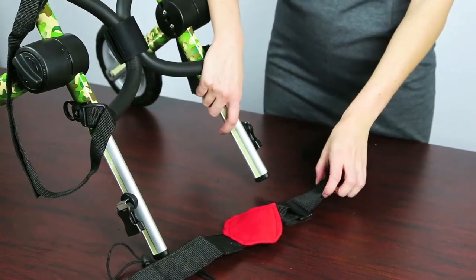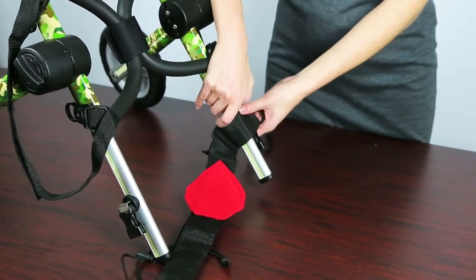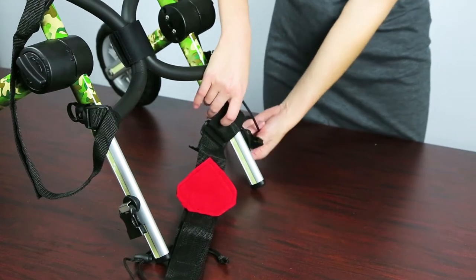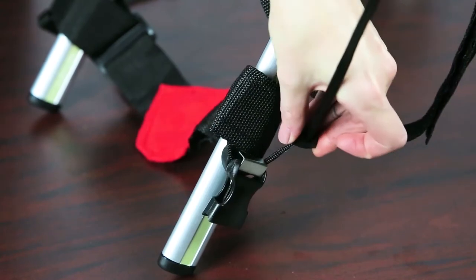Put on the side with the loop and the clip by sliding the loop through the extender. You can keep it in place by putting the rope around the clip of the extender so it doesn't slide farther back, and then tightening it.